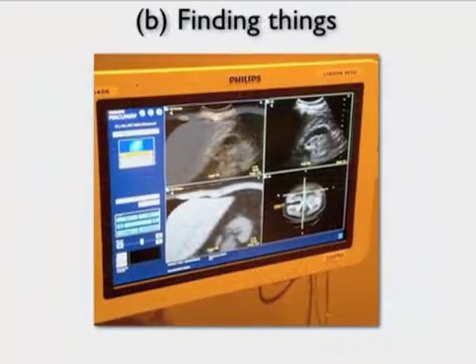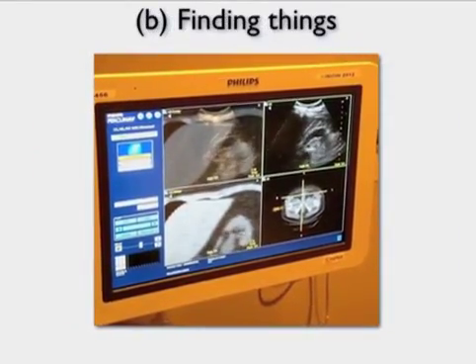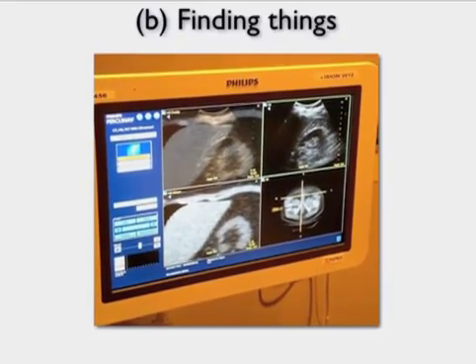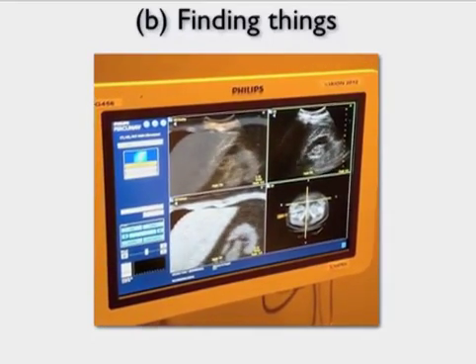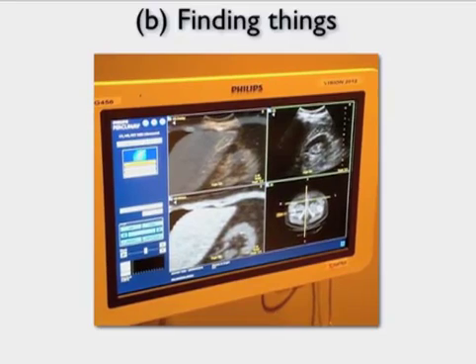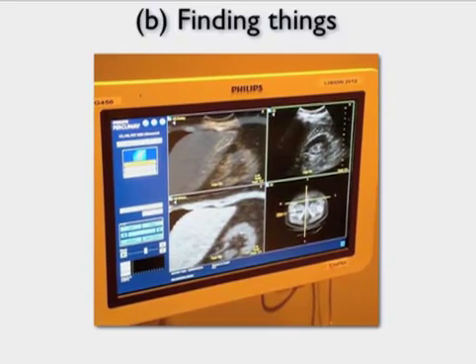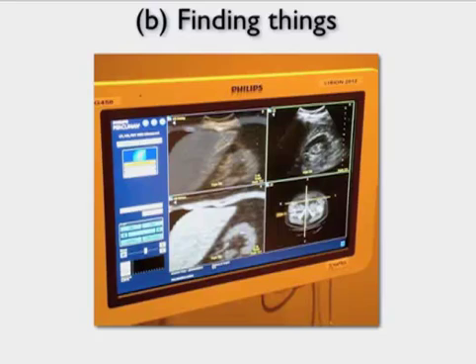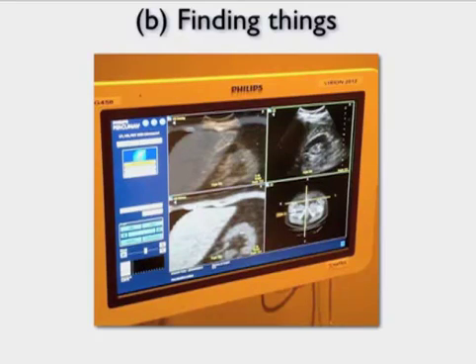We're just getting started with this at UAB. This is a shot of what it looks like, and the way it works is you scan and you're looking at the ultrasound image overlaid on the CT or MR image, so they're co-registered. What you see in one image matches what you see in the other.